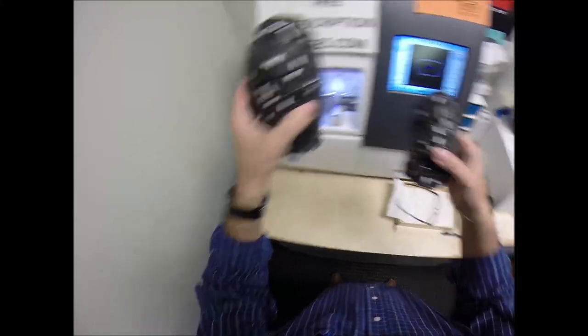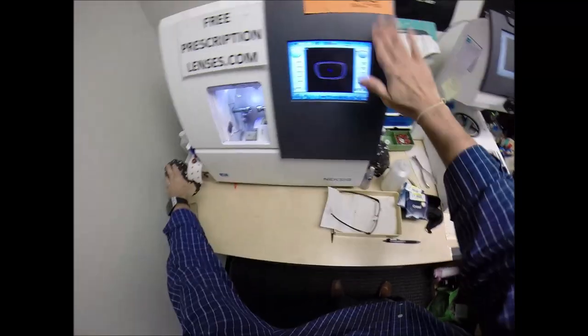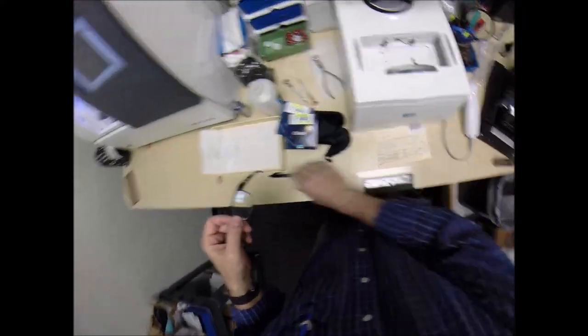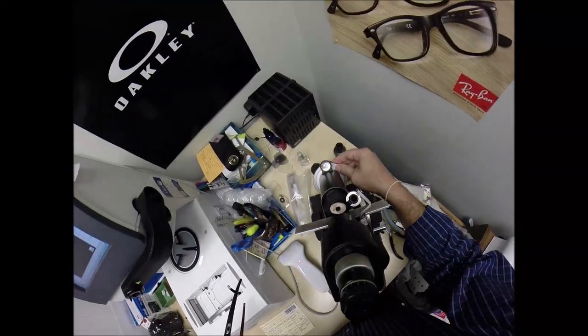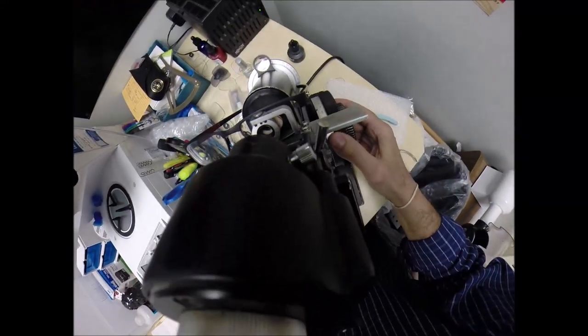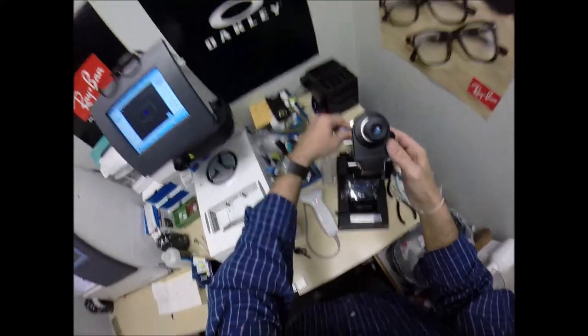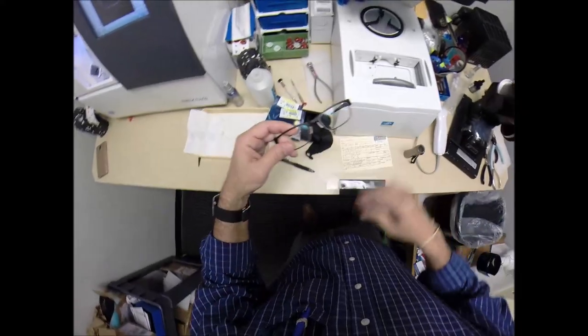Throw that in there. Let's see where to put this one. That one is pulling up a little bit. Let's stick that one back down on there. Make everything nice and even. First 11 months with this edger, the newer one, and then last 6 months with that one. So, turn the fine-tune knob to 45. Put it in above that black dot. Check the power. I'm getting minus 2.75, one tick mark away from 3. You have another six steps of astigmatism correction. And, what did I say we end up at? 4 and a quarter. Man, the kid is good. I couldn't have done a better job cutting these lenses if I had done it myself.